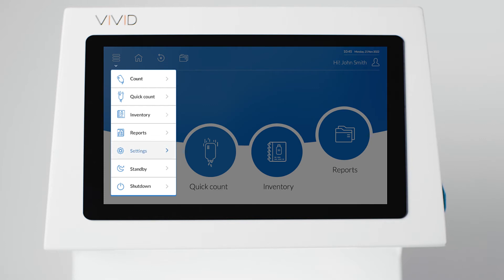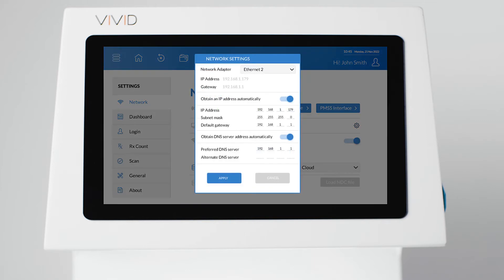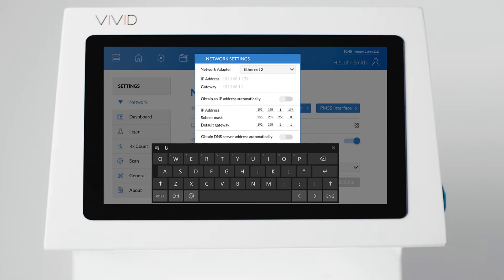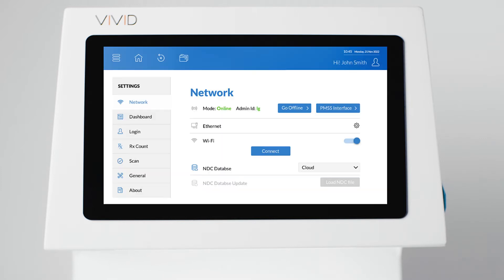Press Menu and select Settings. Select the Network tab and press the Settings icon for your network connection. Next, assign a static IP address by disabling the Obtain an IP and DNS address automatically options. Adapter settings are pre-populated with DHCP data, but you can change your IP address if you need to. Note the IP address, as you will need it when configuring your pharmacy software.